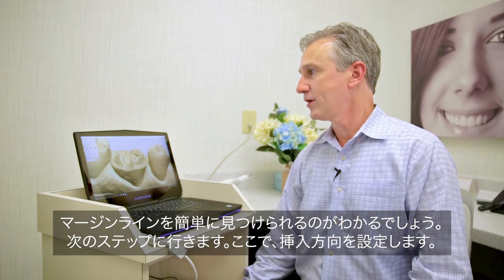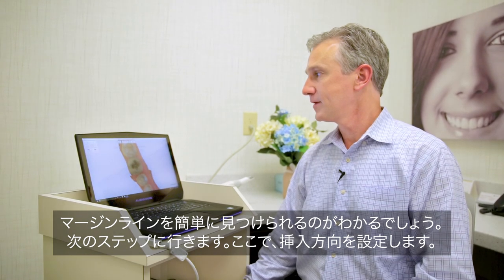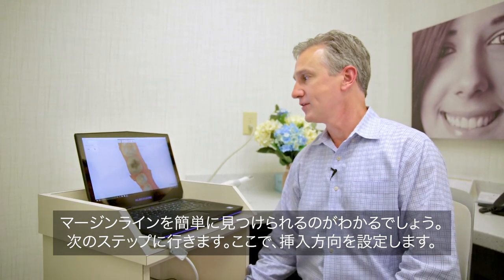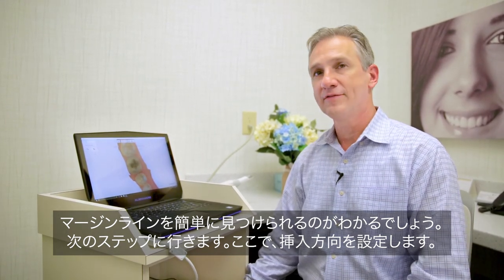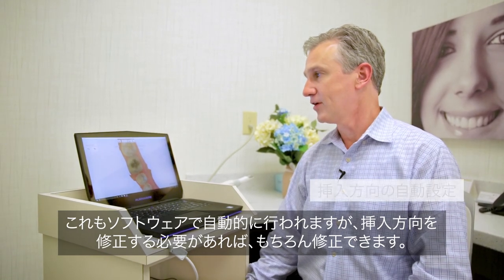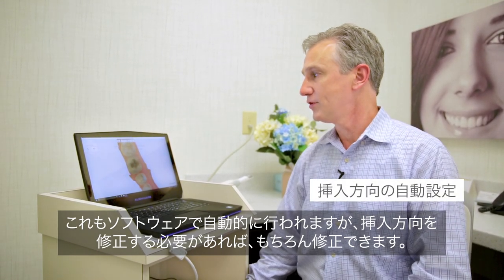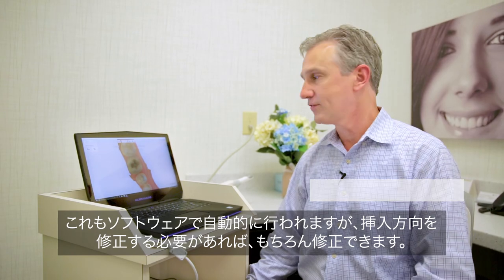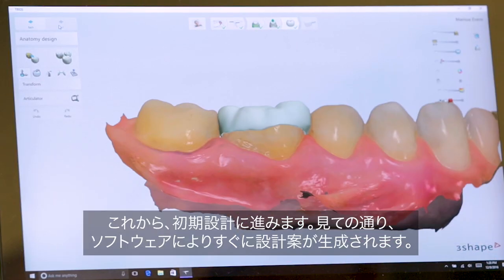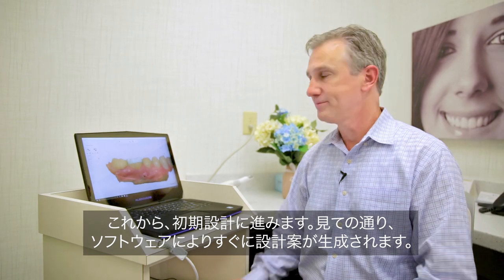Now we'll go to our next step, which is setting the direction for our path of insertion. That is also done automatically. If you want to make changes in the path of insertion, that can be done also. And now we'll go through our initial design.